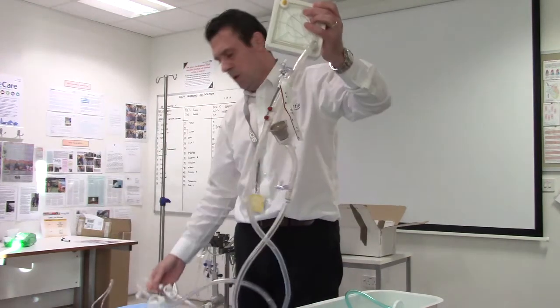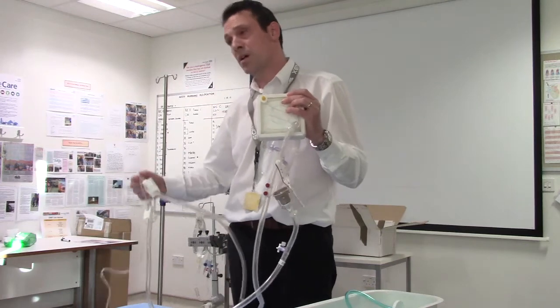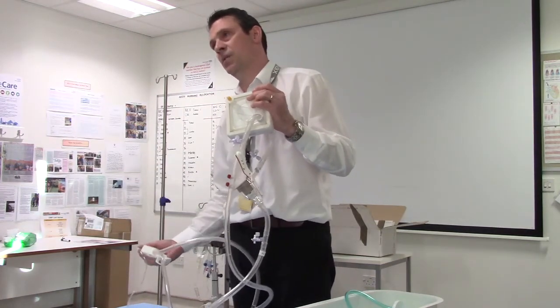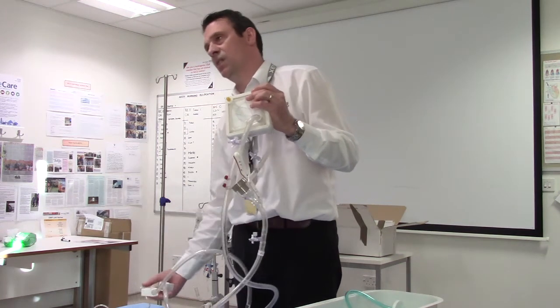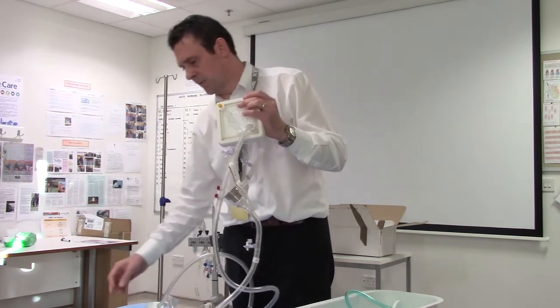There is a complete system here with a loop, and what you have is to connect up your bag of fluid. The fluid can be Hartmann's, saline, or hep saline — that's your choice. There are no rights or wrongs depending on the anticoagulation needs of the patient. If they're a trauma patient you might want to reconsider, but generally the rule is a bag of fluid.